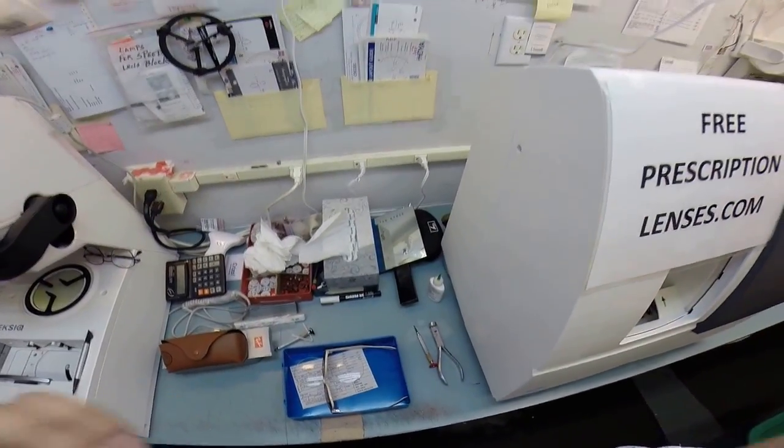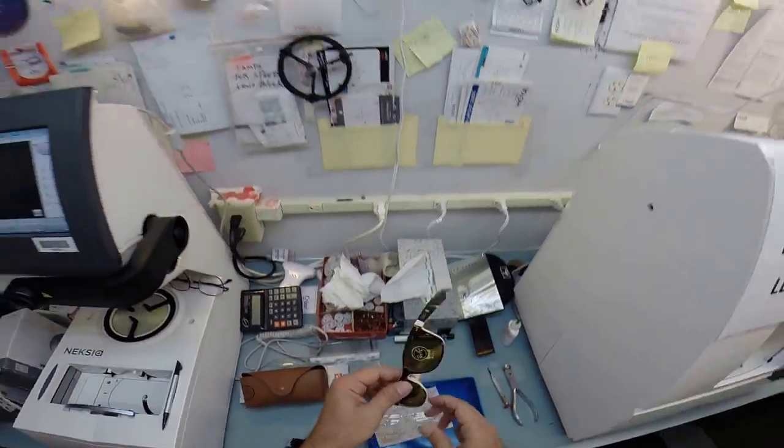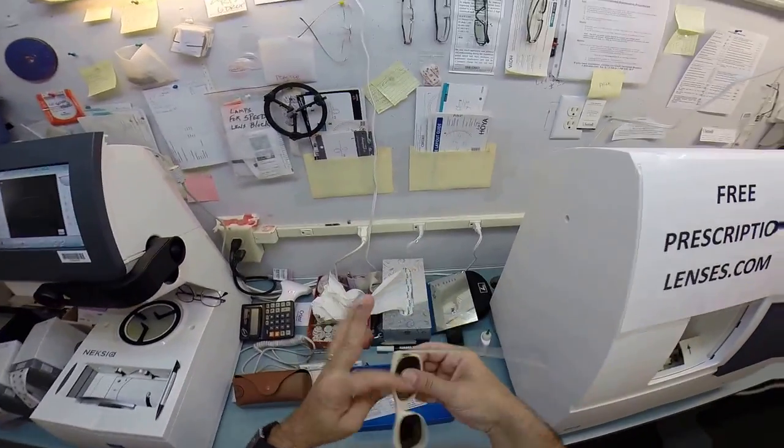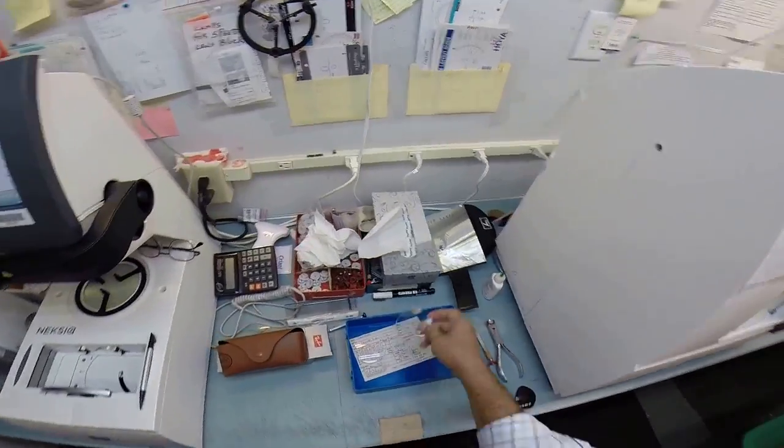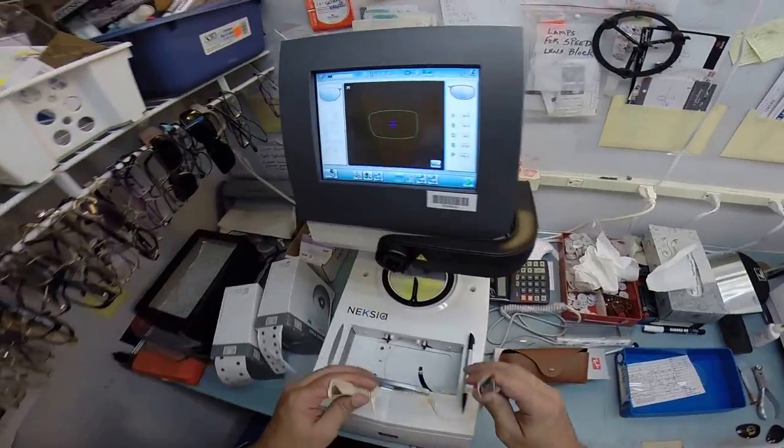Hang on let me put my glasses back on so I can see what I'm doing. Is the light blinking? Yes it is. We are live. So let me take out your original heavy glass lenses. If you drop them they will shatter and I'm going to install some unbreakable lenses to go in there.